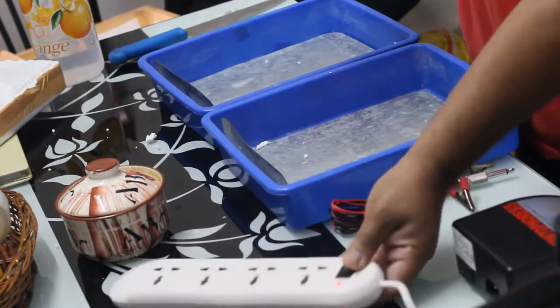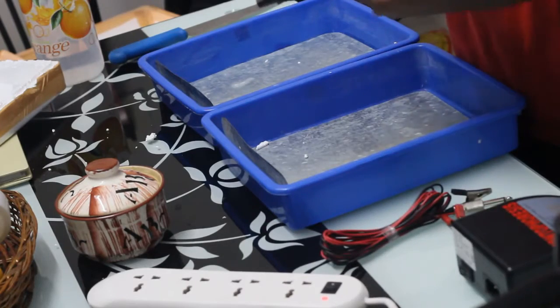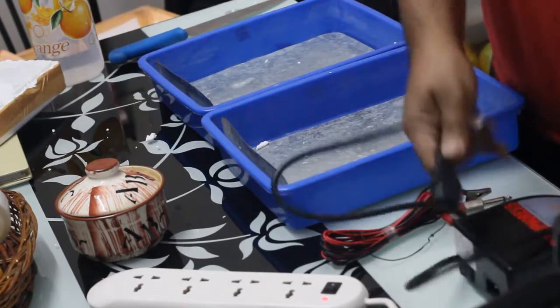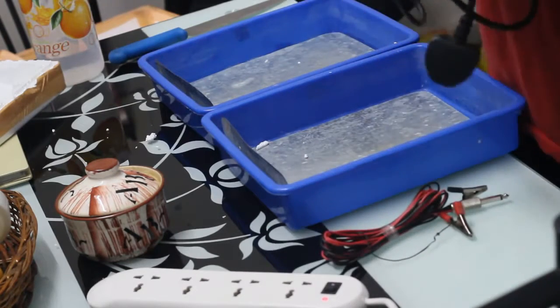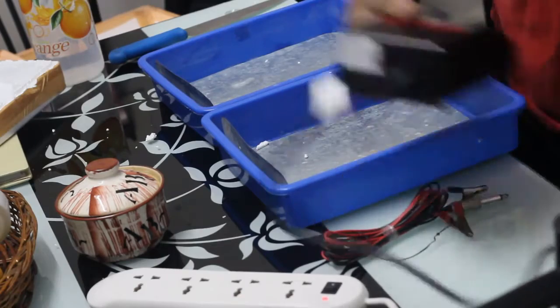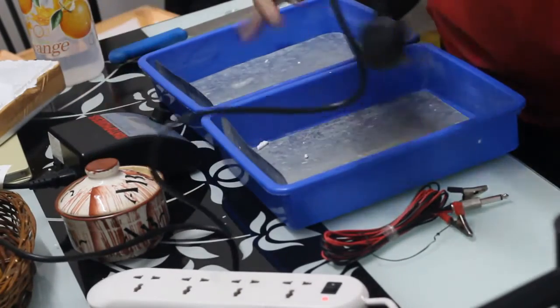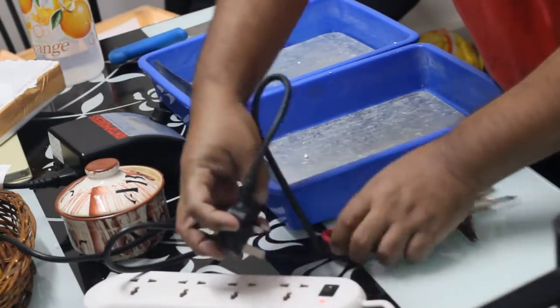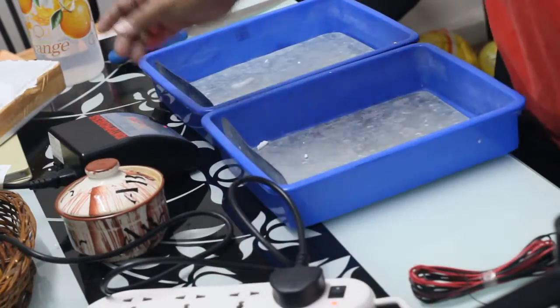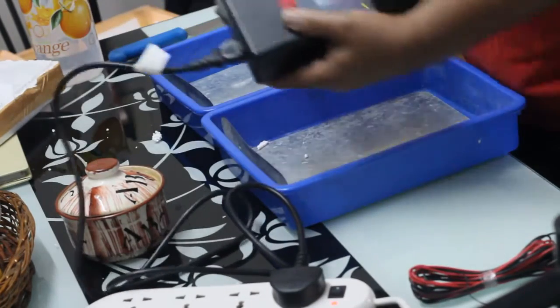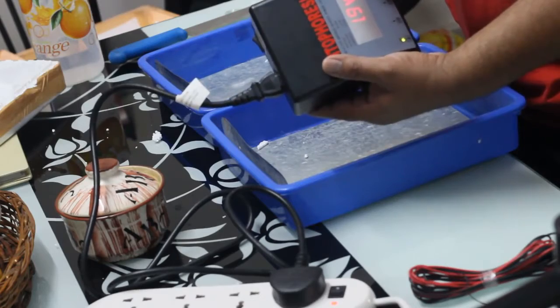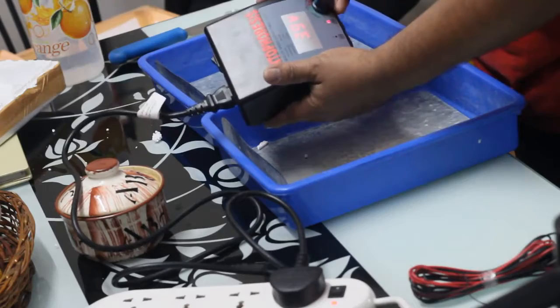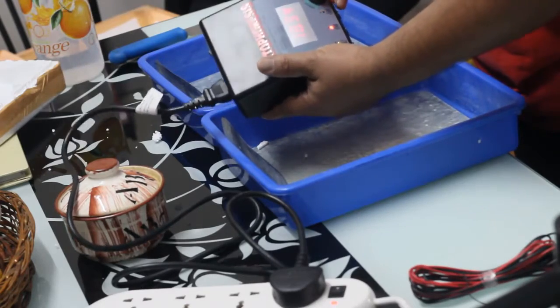And then you see here a power cord. I'm going to connect this power cord to the device and put it in front of the trays. This power cord is not Indian made, it's American made, so you have to find a plug for the Indian to American switch.